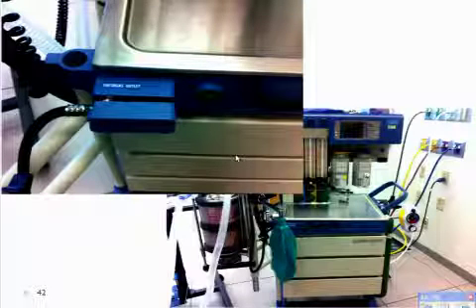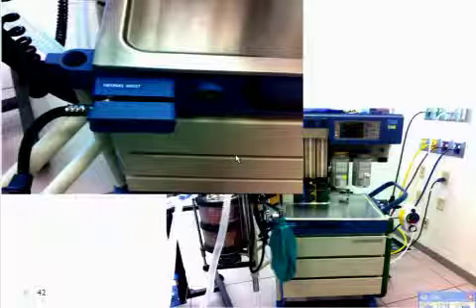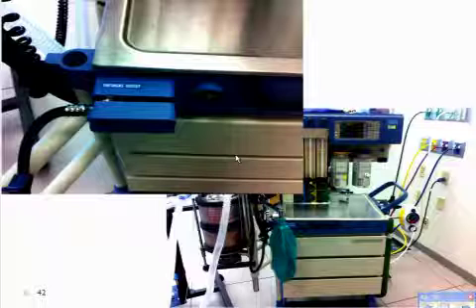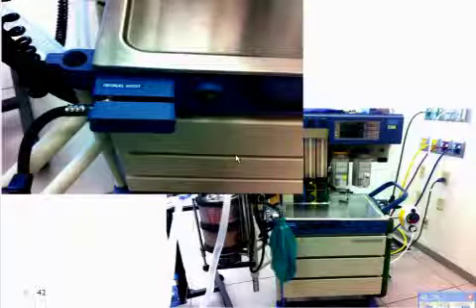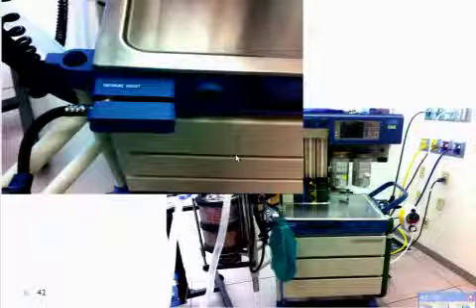Okay, so this is our flush valve. All right, it's just showing where it is. It's located on the front of every anesthesia machine. Doesn't matter which anesthesia machine you get, you're going to see it. And usually it will even tell you. It'll be a green button and it'll say O2 plus. Okay, O2 plus. That's what it's coded as.